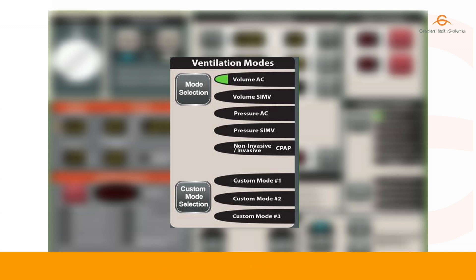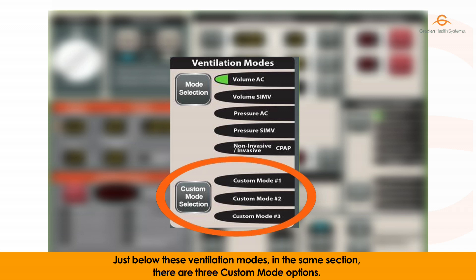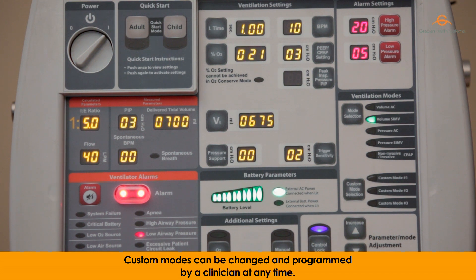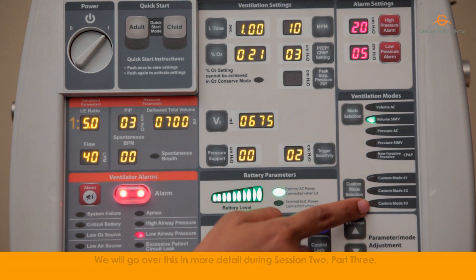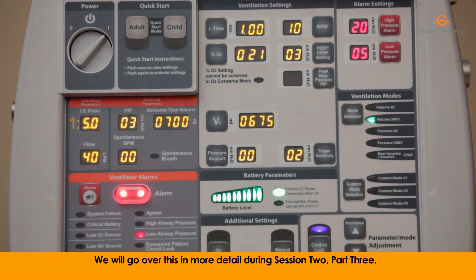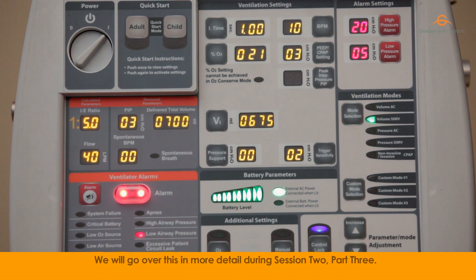Just below these ventilation modes, in the same section, there are three custom mode options. Custom modes can be changed and programmed by a clinician at any time. We will go over this in more detail during session two, part three.